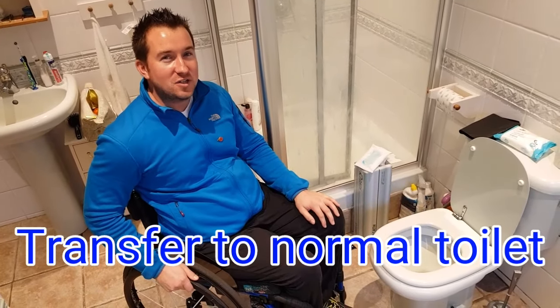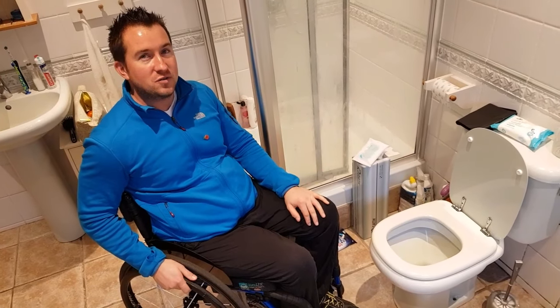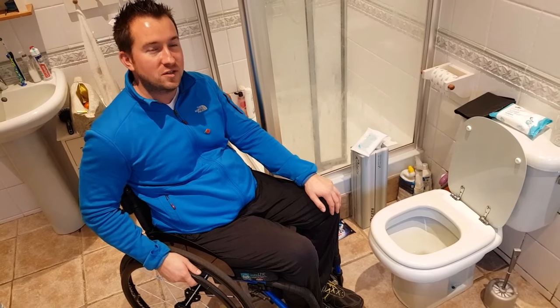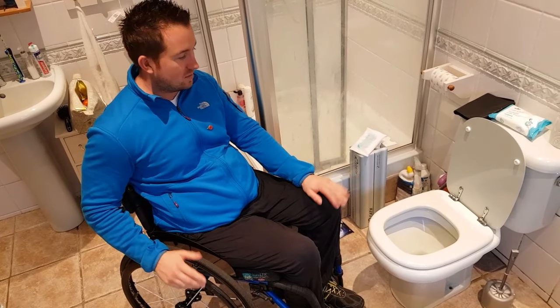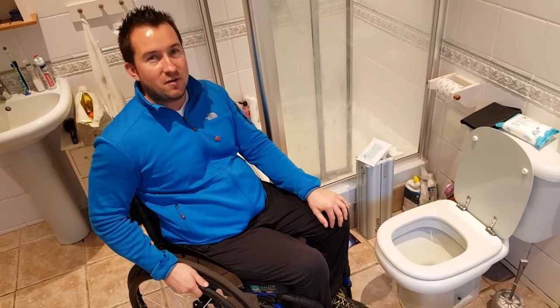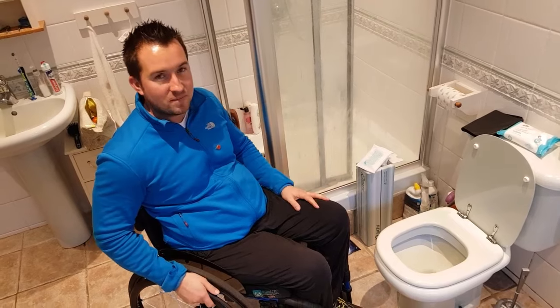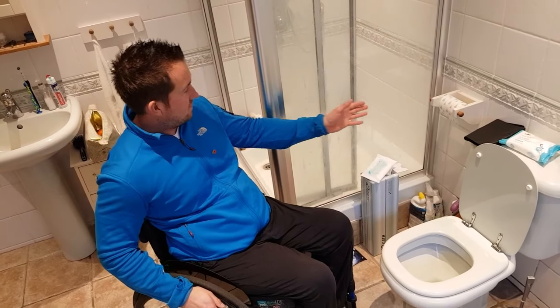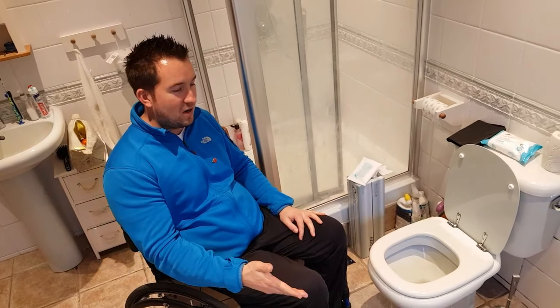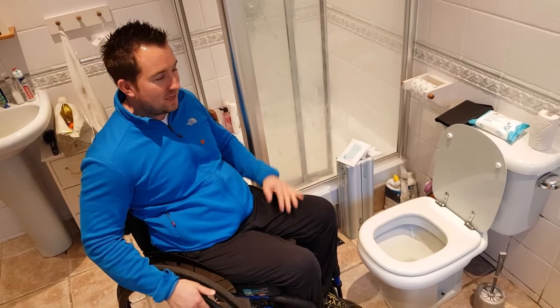Hey guys, Sam again. I'm going to show you today how I use a toilet. I don't have any adaptations or any bars or anything in this one because we're in rented accommodation and for the moment it's kind of as it is. But to be honest I have learned to cope without it. I'm T2 paraplegic if that helps. The layout of the bathroom here means when I'm on the toilet I've got a shower screen and a bath edge, so in a way it's almost like having some sort of stability aids.